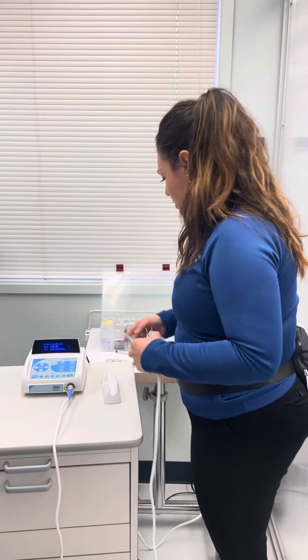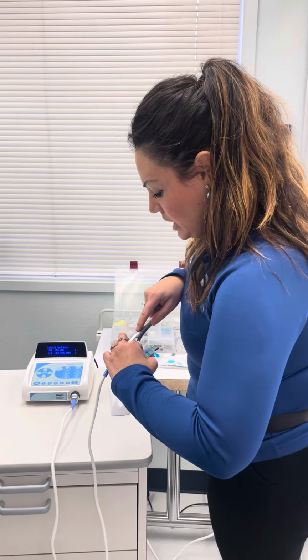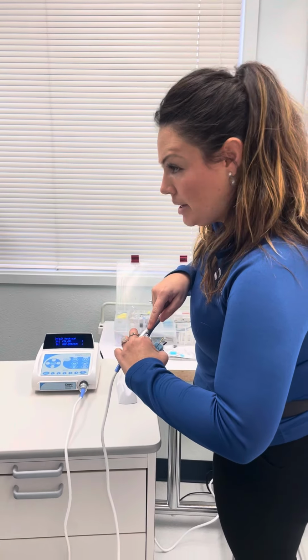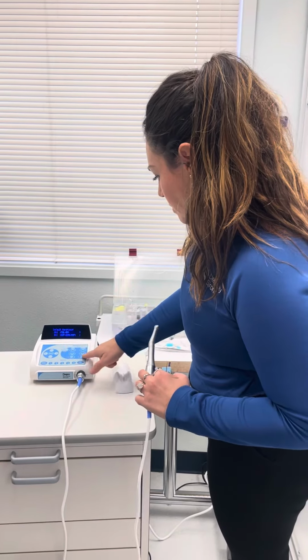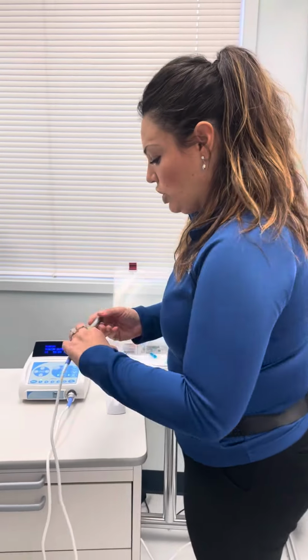Now I'm going to go ahead and press the button for the 8, the TUL 8M. So see, we've got that. So I'm going to say yes. Now you'll never have to do that again. In the event that somehow this thing restarts some way, that's what you're going to do. And both contra angles are that.